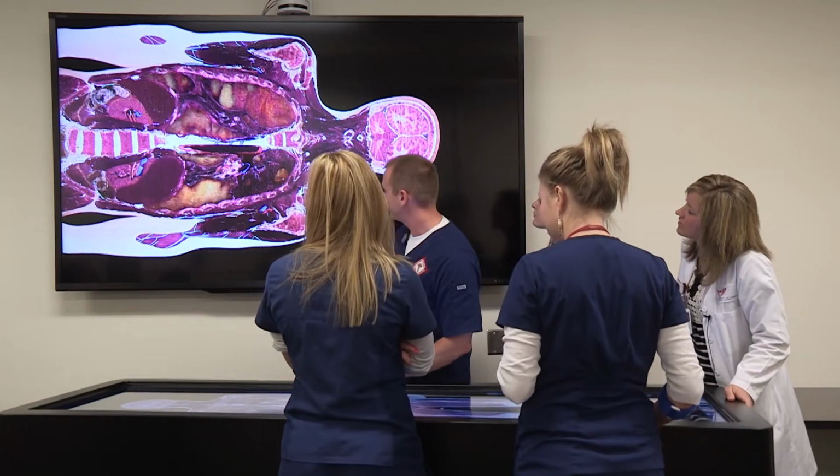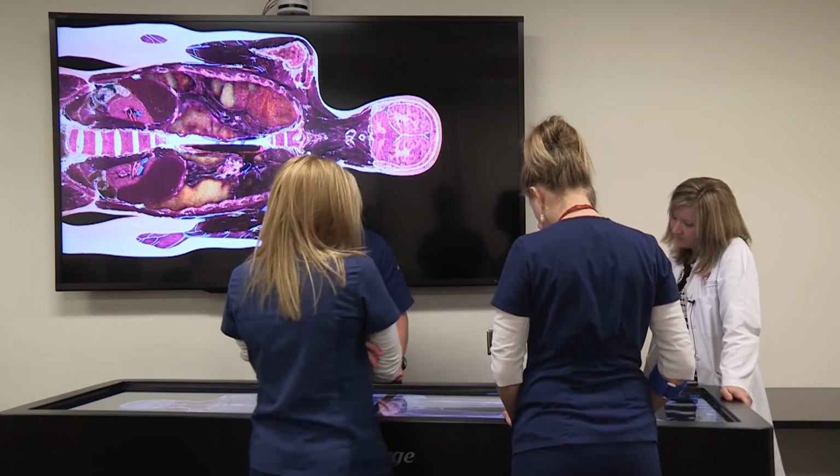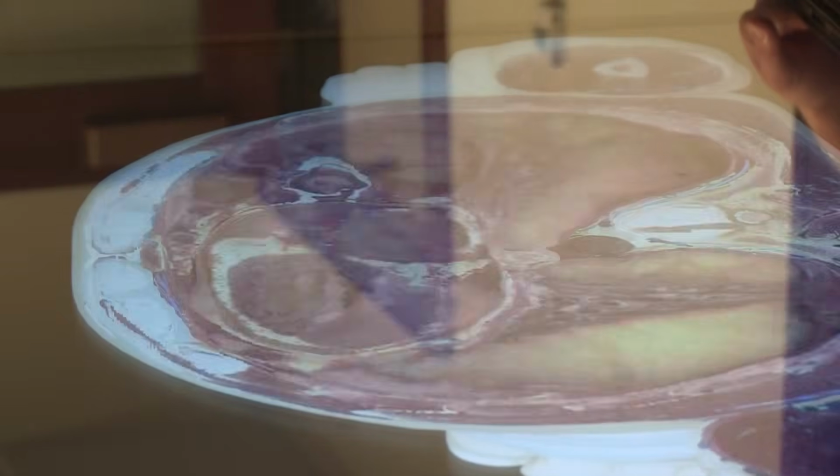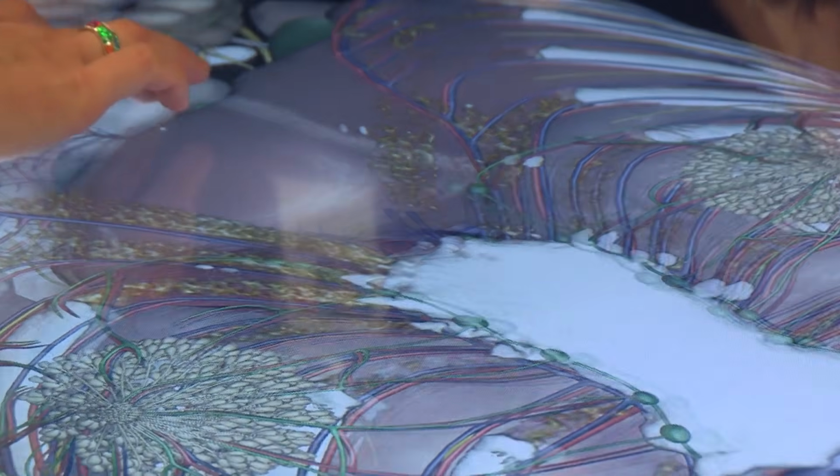We have cases that are different. We have specialties that we can bring in, cardiovascular, bone marrow cases, liver transplant cases. So our students will have an advantage just by seeing those types of cases and being able to load those in the table. A view of a cross-section travels vertically through the human body on the table screen. Michael: We are working to bring new things to our institution and to our students, making us a forerunner in the educational process.